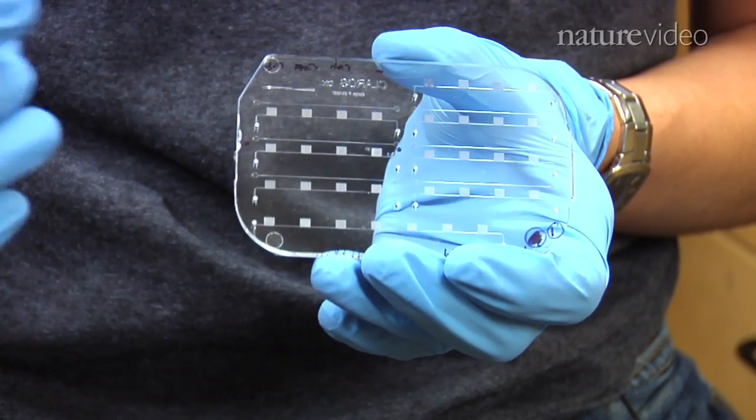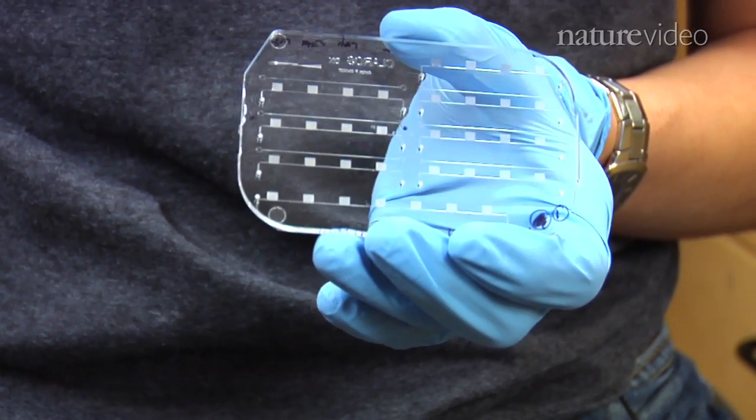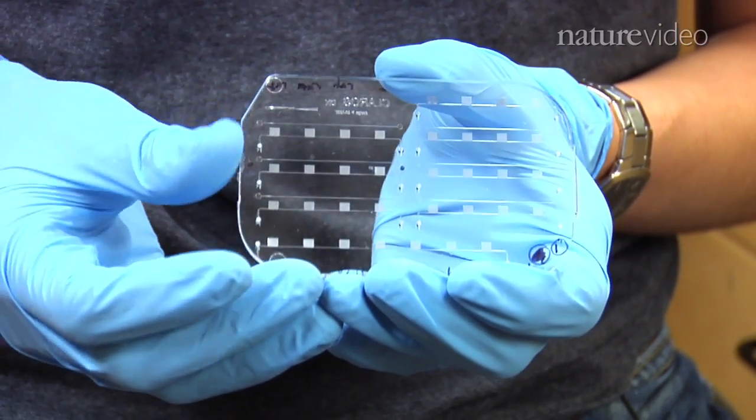Silver and gold may sound like expensive materials, but the M-CHIP is actually quite cheap. The material in making the cassette is just pennies in plastic, and even the reagents, because we use such low volumes, only cost a few pennies. We think that after packaging it together, it will probably cost a few dollars.